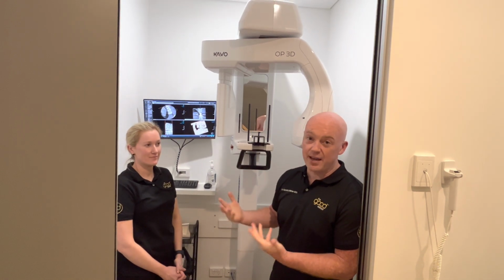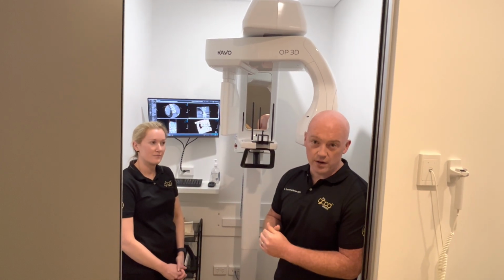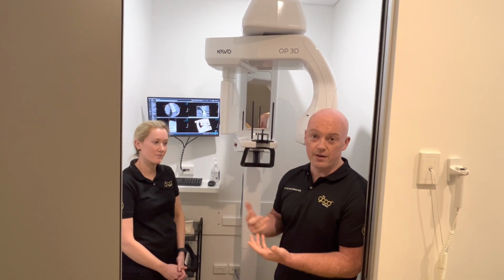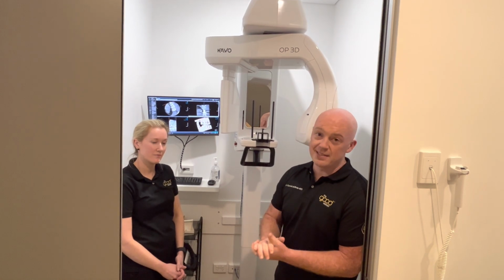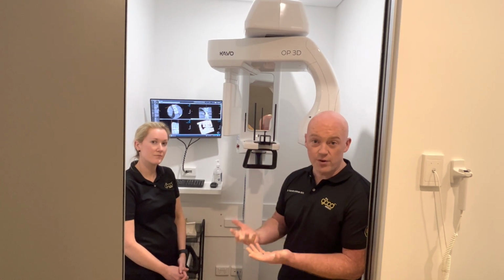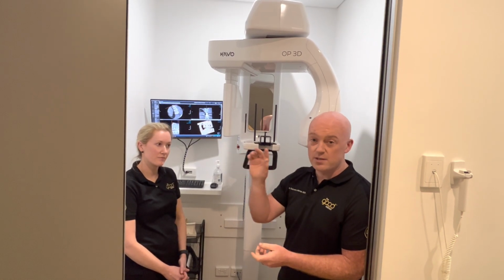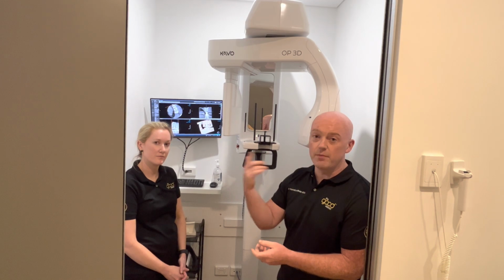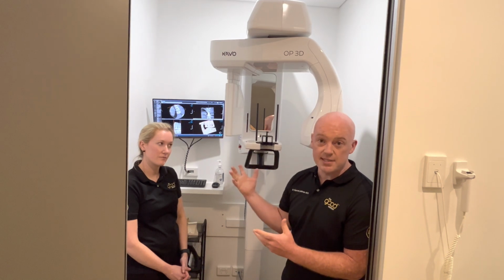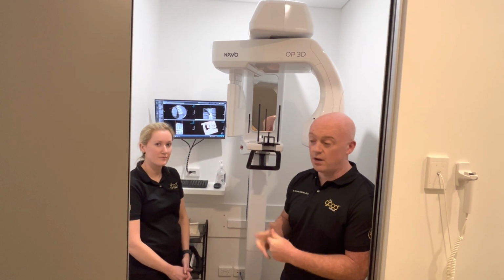So not only are Amy and I finding this a really good way of treating the general everyday parts of our dental work, it also helps me plan implants. In terms of implant planning, back in the day before I had this in the practice, we were losing about 90% of our patients that were interested in implants. We were only having a 10% case acceptance, because as soon as they go out that door, it's very difficult to rejig and realign with that patient. Now we're sitting at about a 98% acceptance rate. Patients love to see it on the screen. They love the technology, and it's been a phenomenal addition to how we practice.